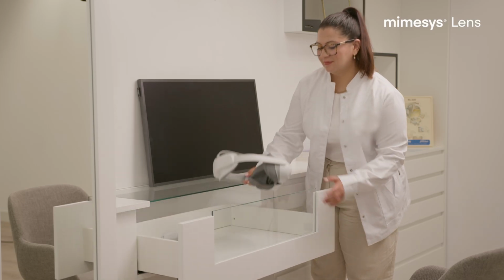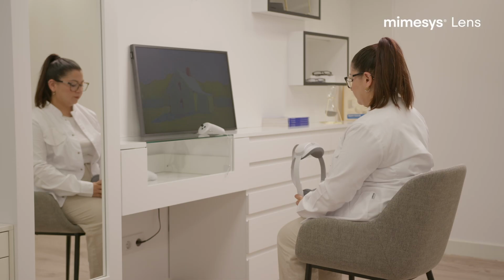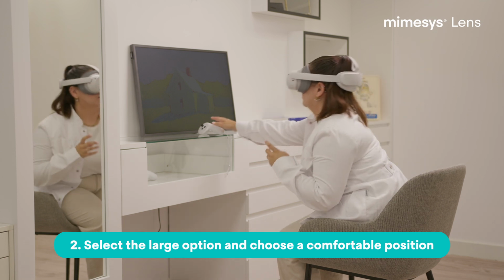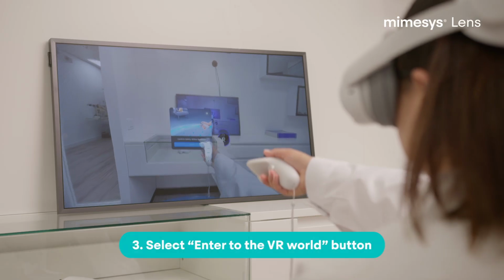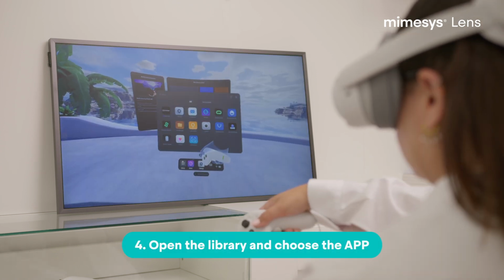Activate the device by pressing and holding the power button down until the light illuminates. To establish your designated area, select the large option and choose a comfortable sitting position. Then select the Enter to the VR World button. Open the library and choose the app.